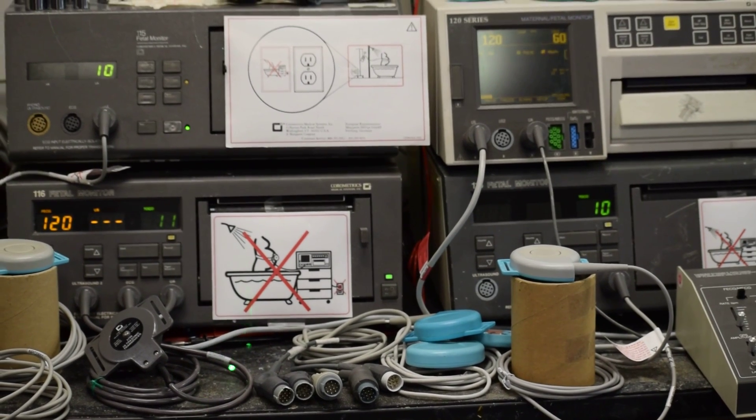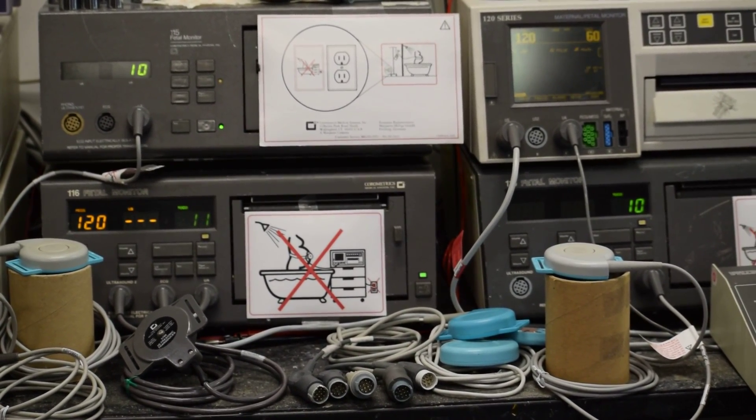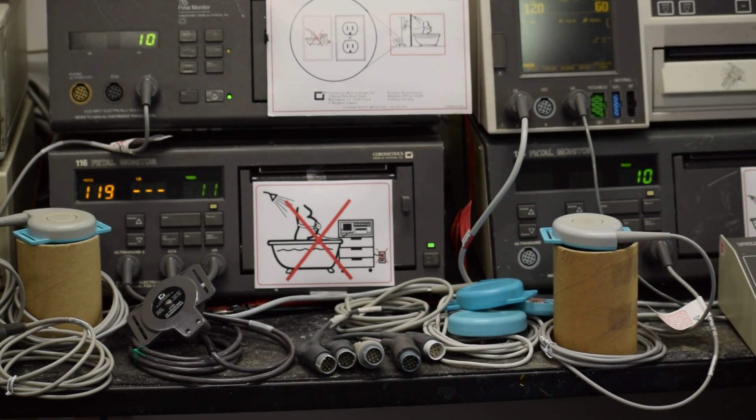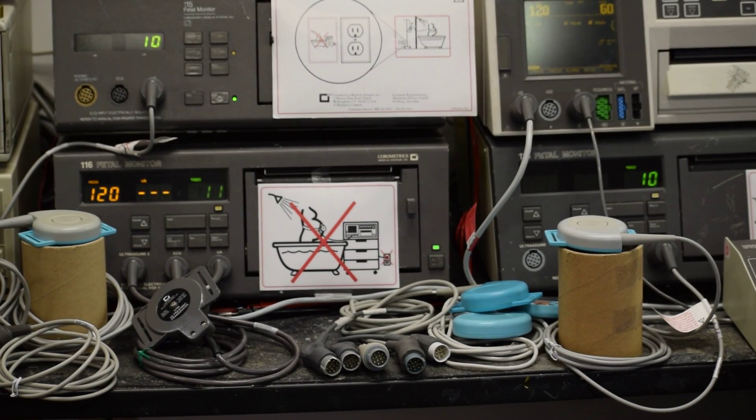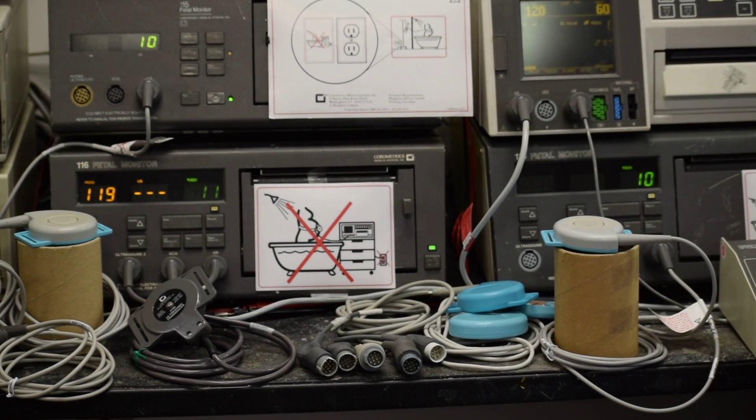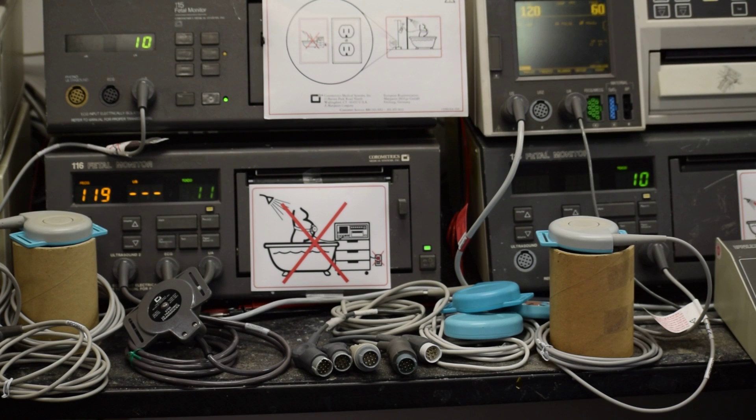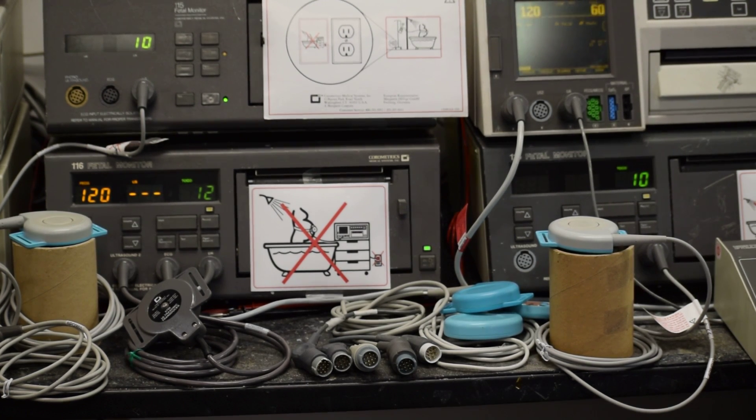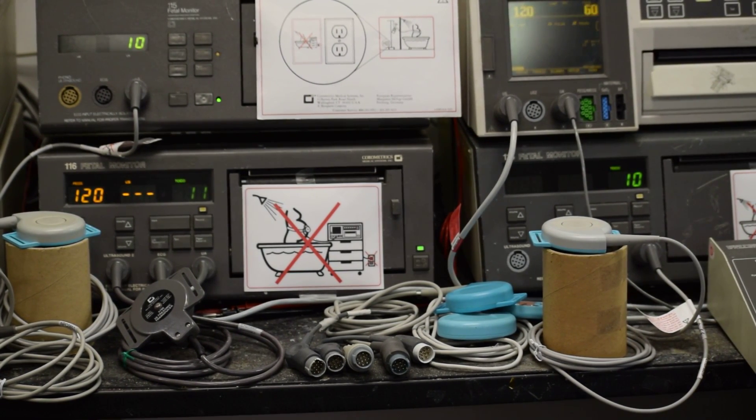Both the sockets for TOCO, ultrasound, or even ECG get damaged if aftermarket parts and aftermarket connectors are used. In addition, the crystals used, if they are non-OEM, the center frequency drifts, spurious signal probability increases, and the whole setup becomes unreliable. The spurious readings interfere with clinical interpretation.